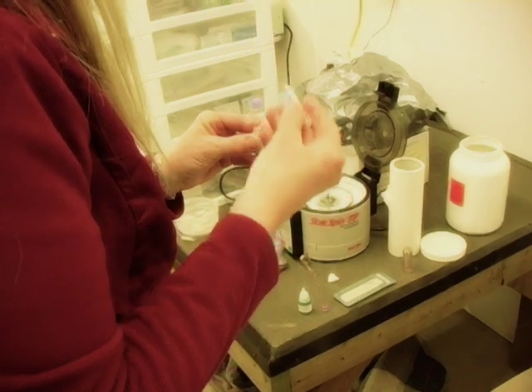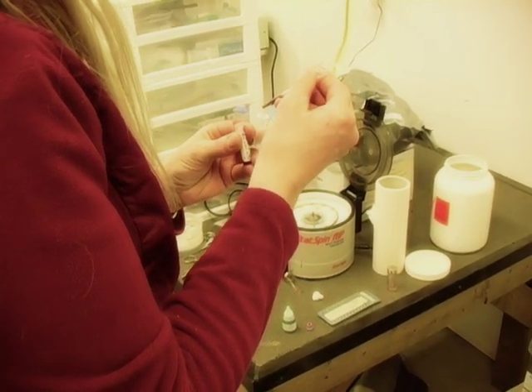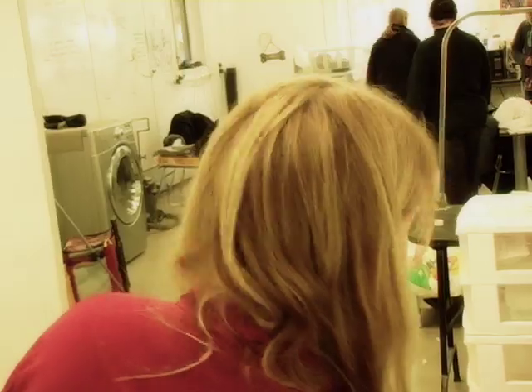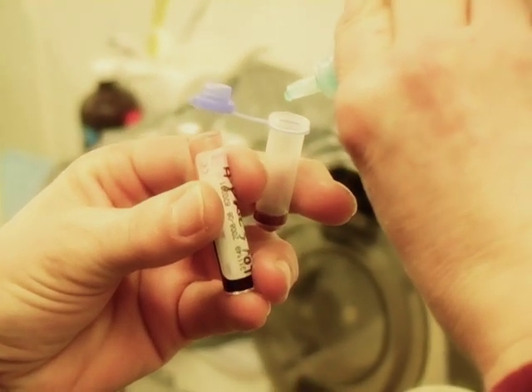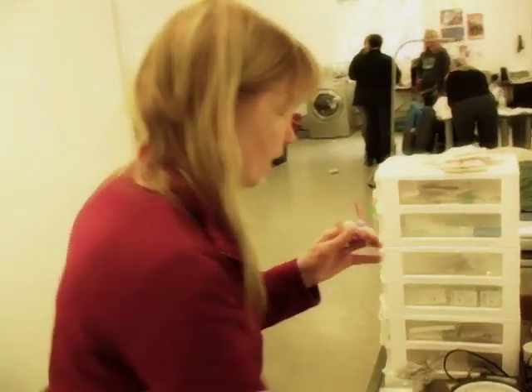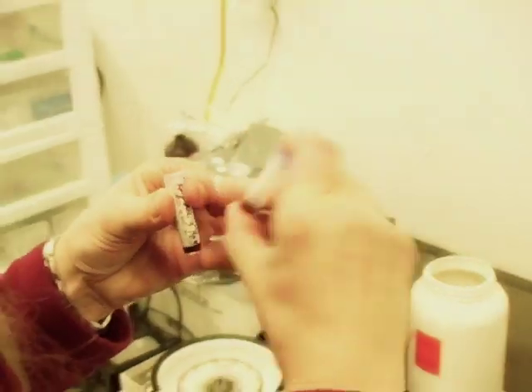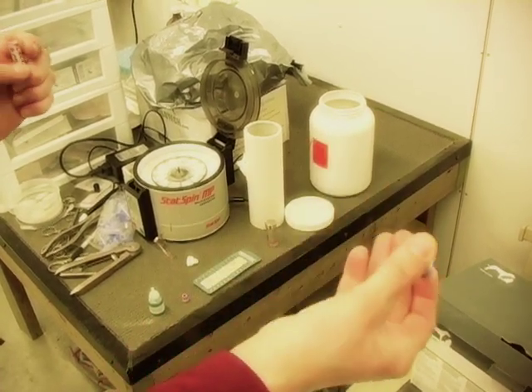The procedure is taking three drops of blood of your sample and adding four drops of the diluent. Then just mixing — invert it five times to mix the two together.